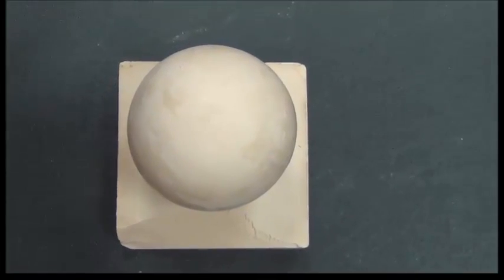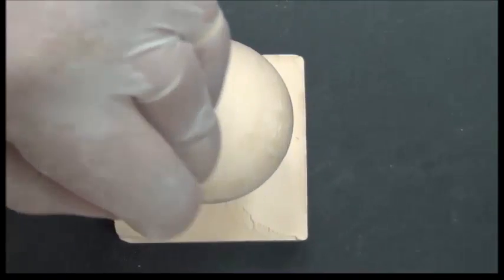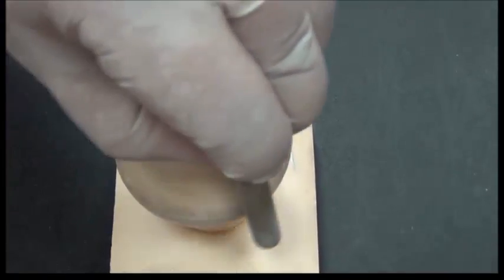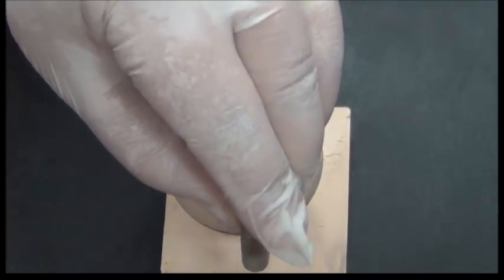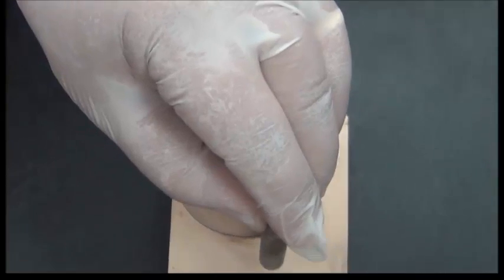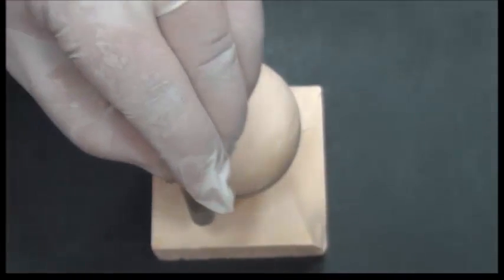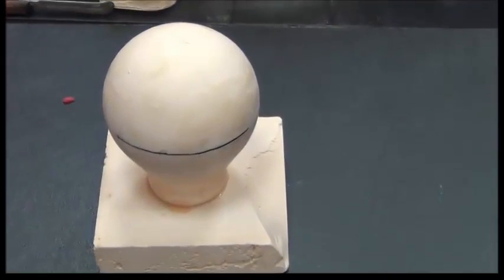Then I would use the carbon marker to draw this line, just by running across the surface. I would find a line drawn on the cast, using the carbon marker parallel to the path of insertion that I would like the denture to go in by. If we draw on the bulge, we will find that a line is now present.